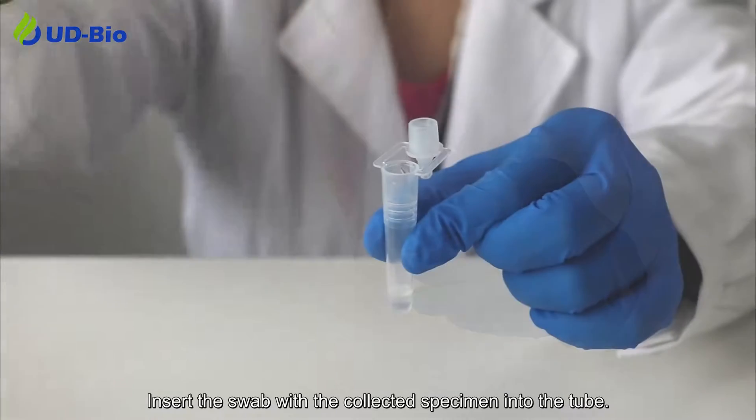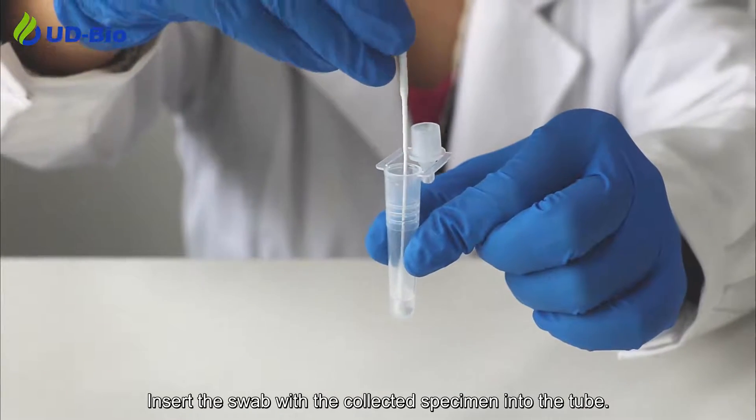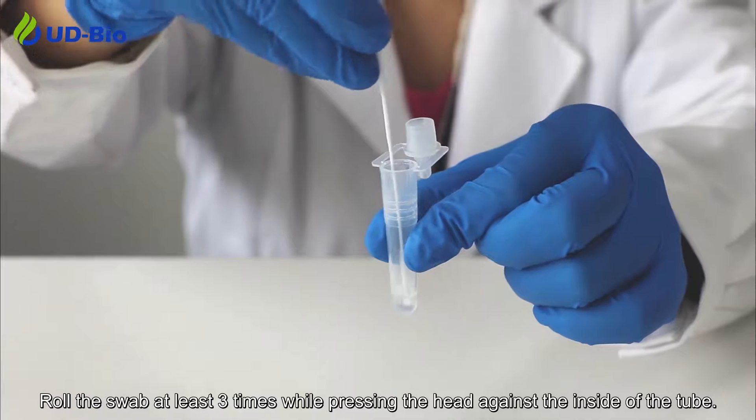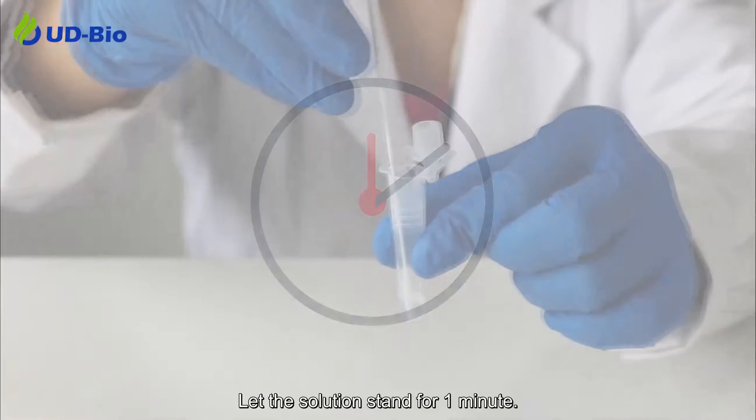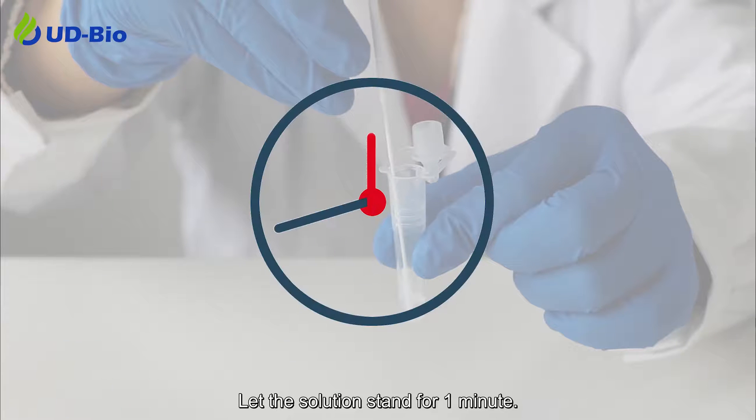Insert the swab with the collected specimen into the tube. Roll the swab at least 3 times while pressing the head against the inside of the tube. Let the solution stand for 1 minute.